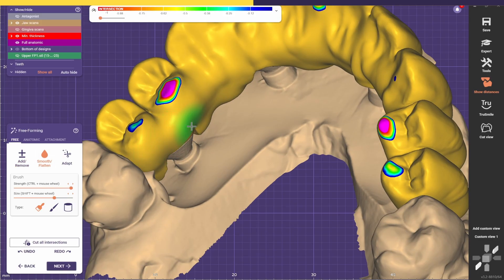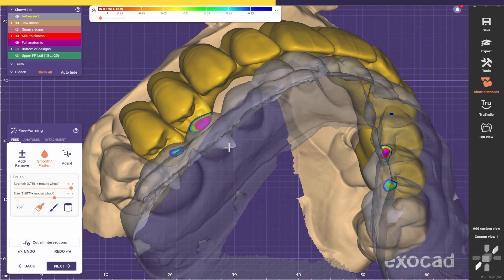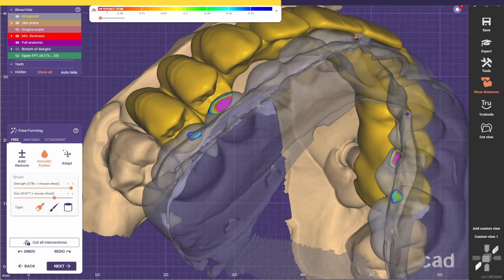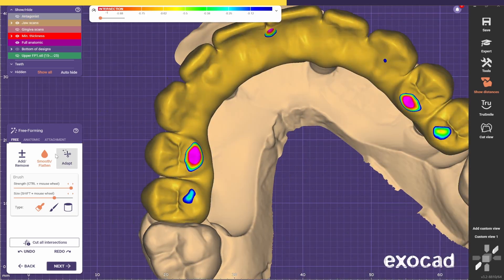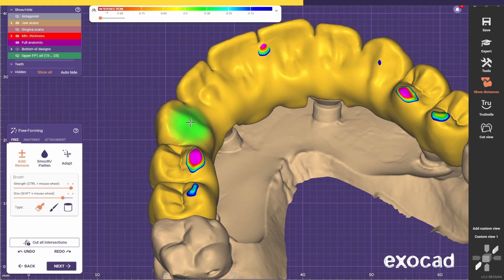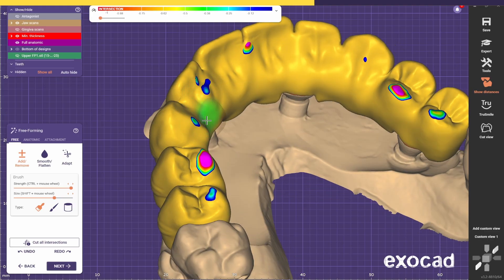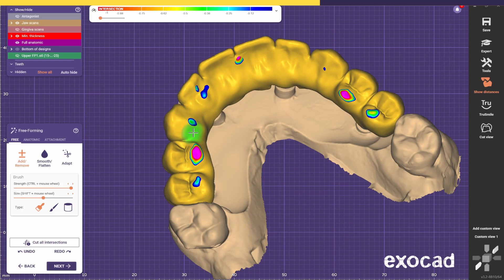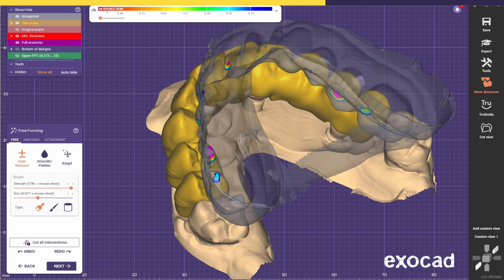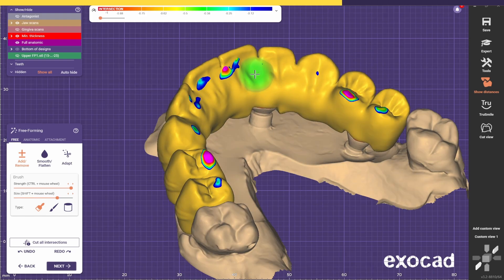Now we smooth it out. We also need to make sure that we have contacts everywhere — I might need to thicken up this canine. It's not going to be the prettiest, but it's going to be functional. We need to make sure that we have contacts on every tooth and a balanced contact point across all the bridge. Now we can adapt the occlusion — I usually like to go 0.2, so we have a bit of room to smooth the surfaces.